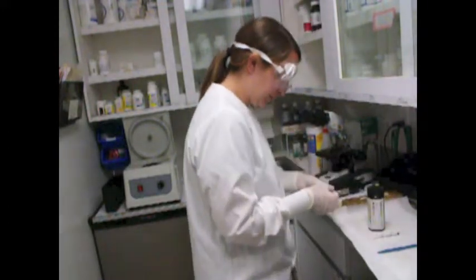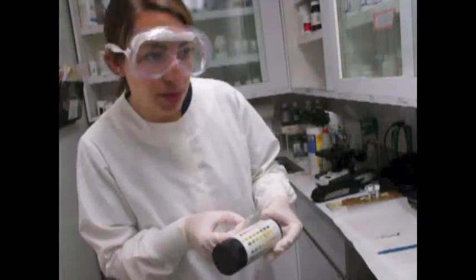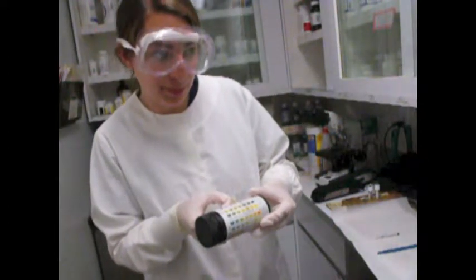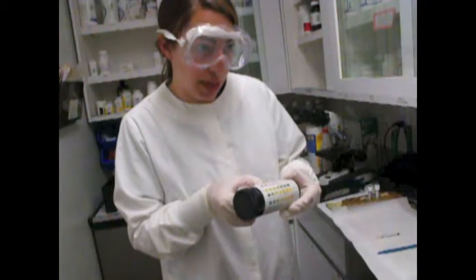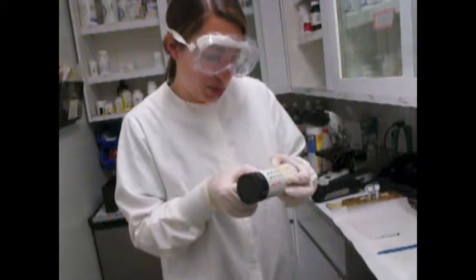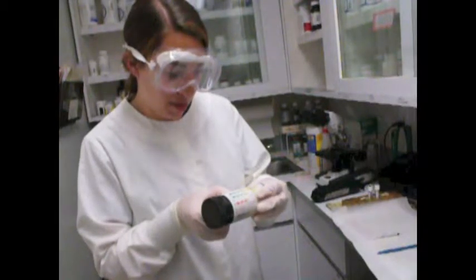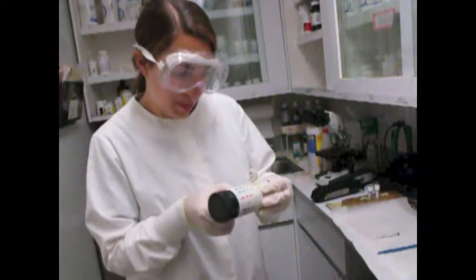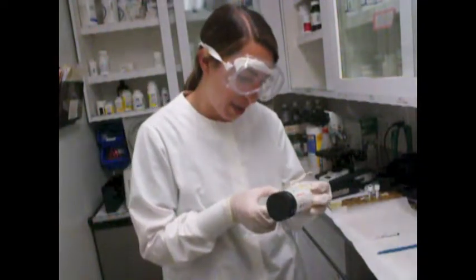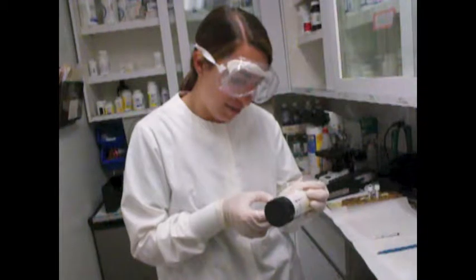Okay. So first is my control. Okay, so glucose is read at 30 seconds, it's negative. Bilirubin's negative. Ketones. Looks like there's trace amount of ketones, negative. Specific gravity is at 45 seconds. It's coming up exactly what I read on my refractometer, 1020. Appears to be trace amount of blood. pH is around 7.